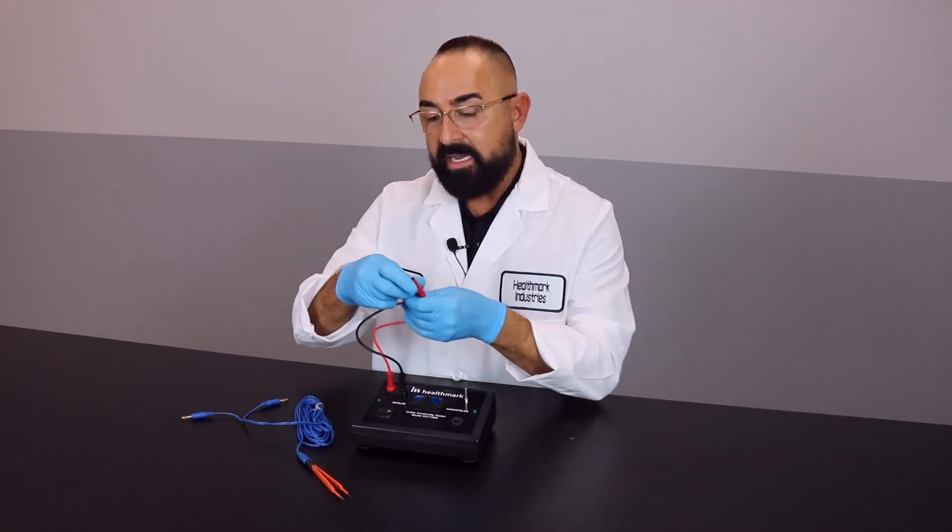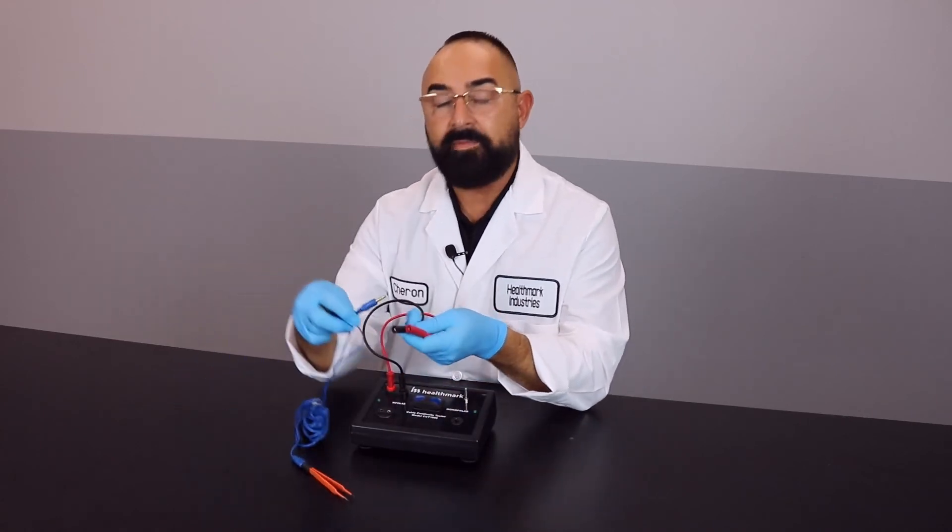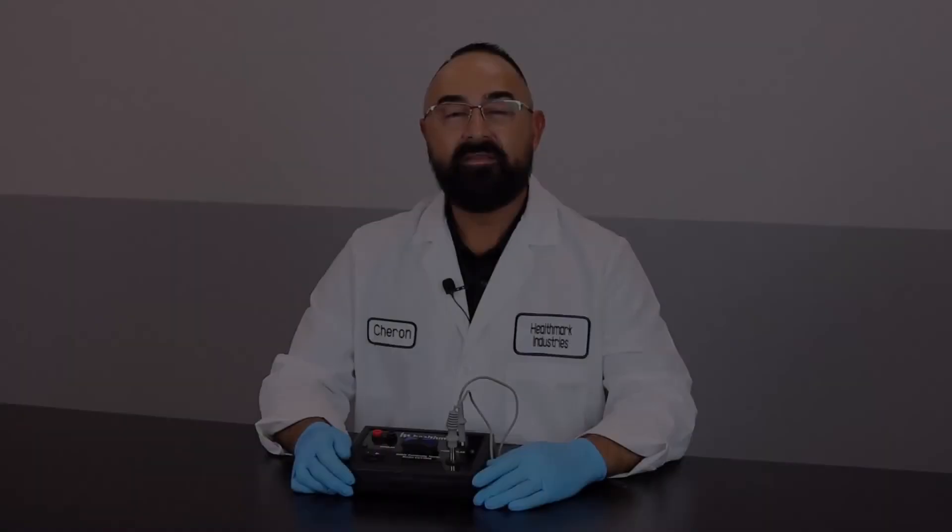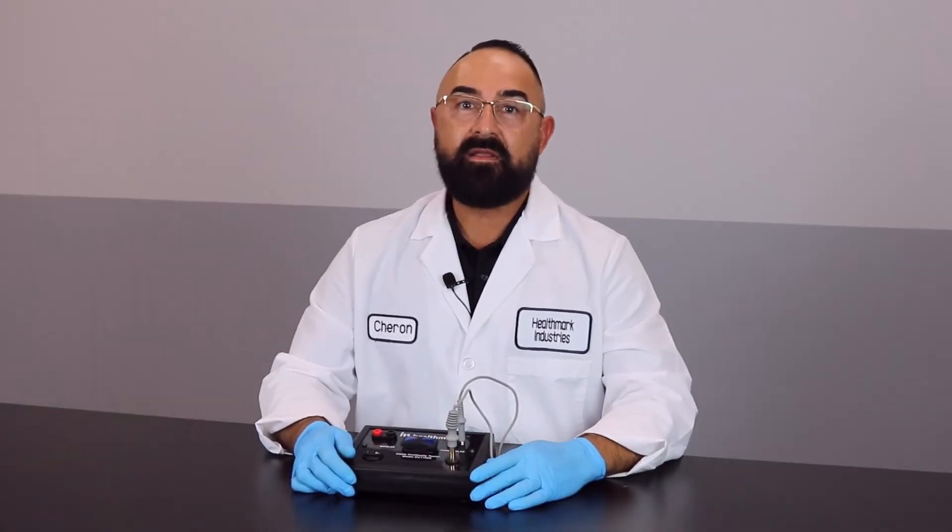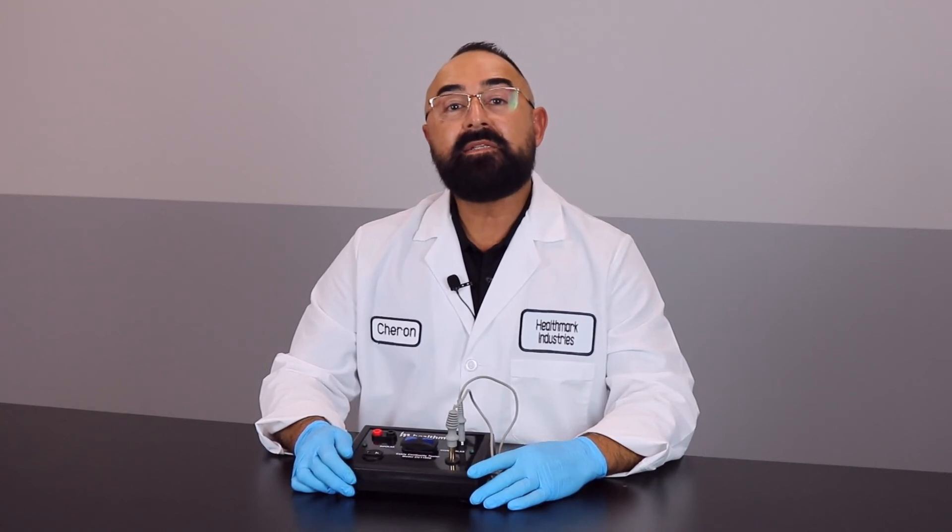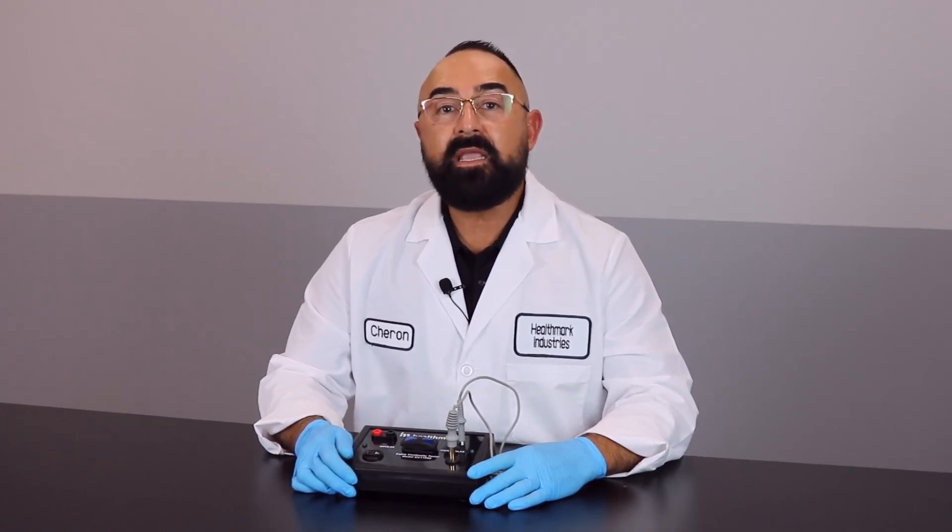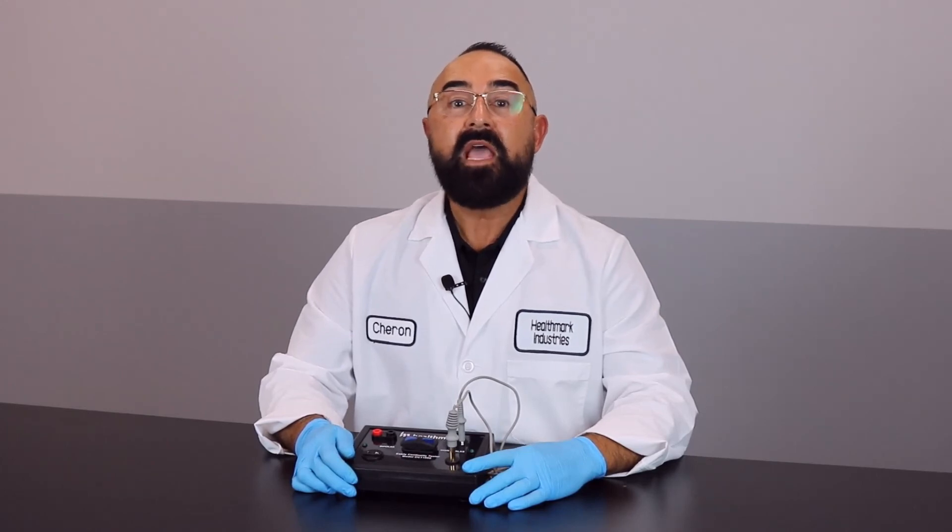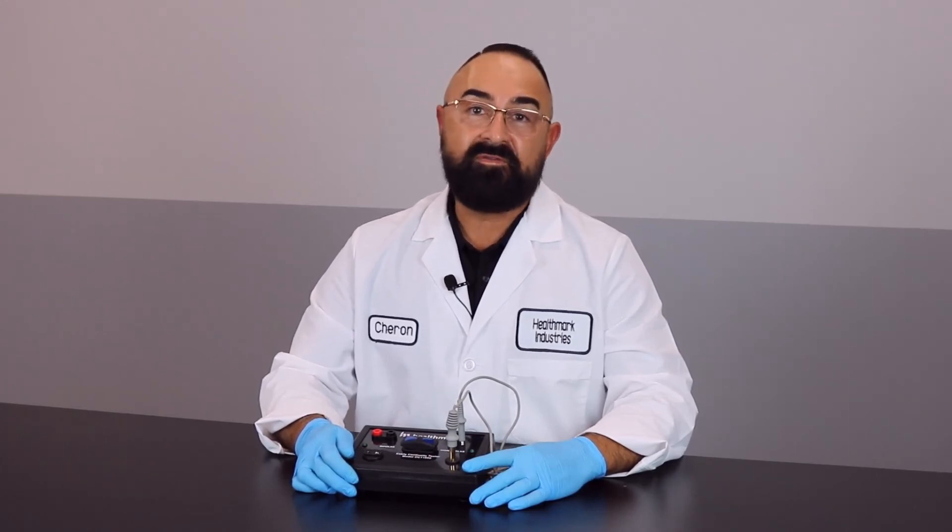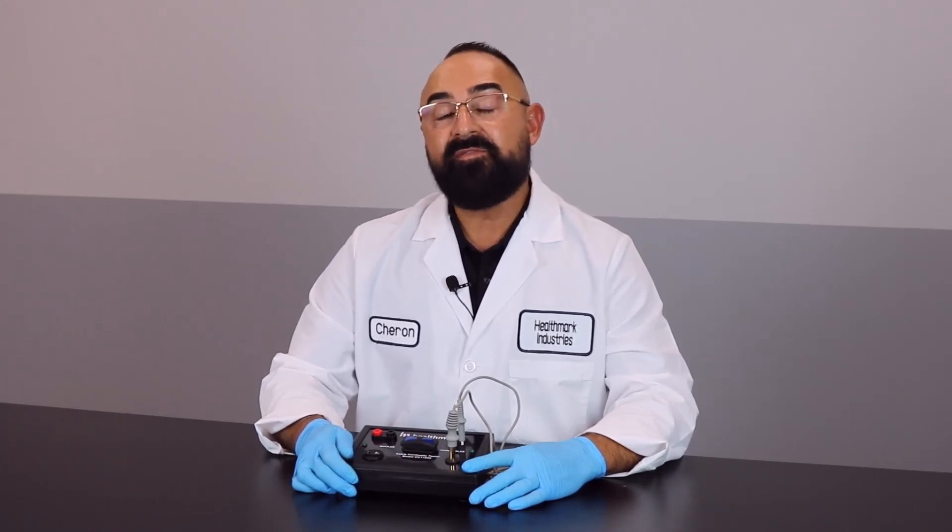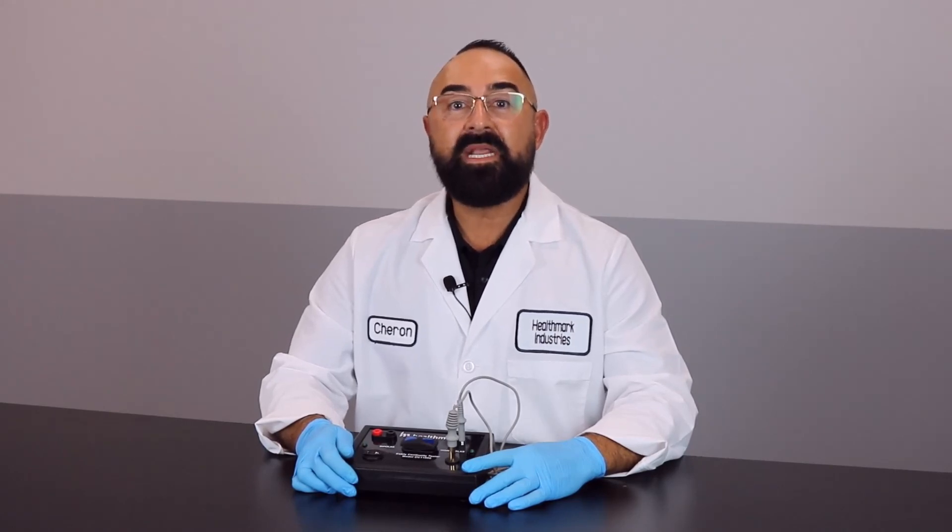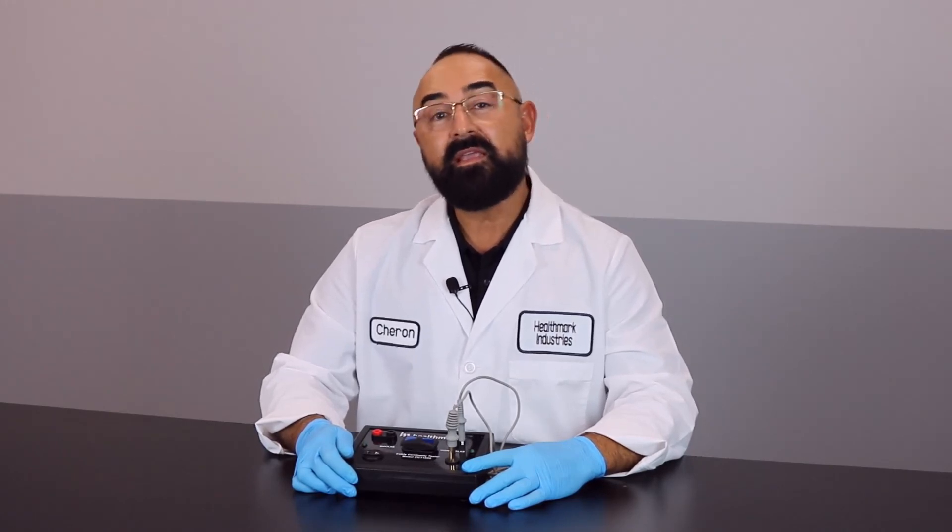And actually hook up each part of the post with that specific adapter. ANSI-AAMI ST79 Amendment 2 states that cables and cords are a source of concern. There's been documented cases where patients have had burns, surgical fires as well. Healthmark has developed the cable continuity tester for patient and staff safety. Thank you.